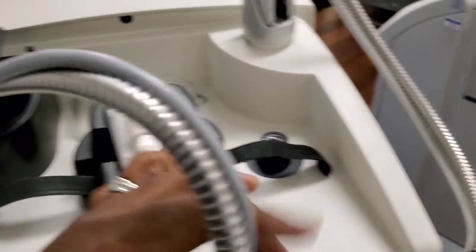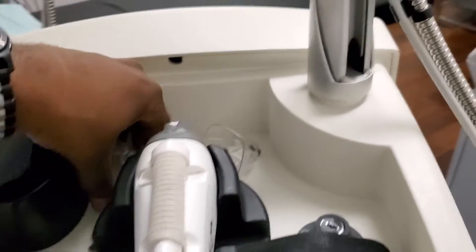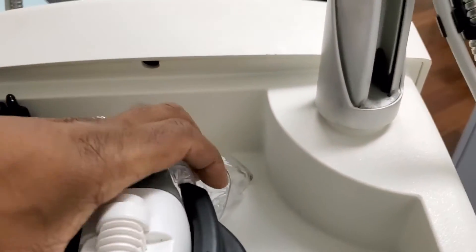The proper way that this handpiece should be placed in, it should be put down just like this, which you should also put a cover over it.